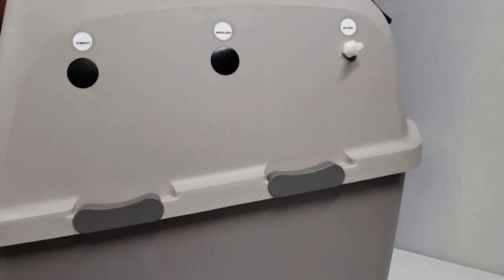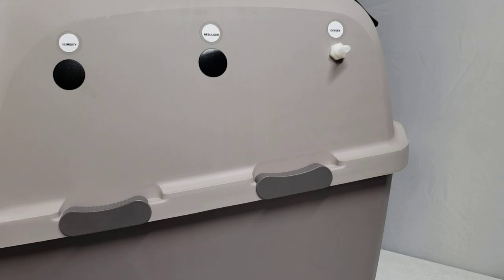Hi, this is Jake with Lifeline Pet Supplies. Today I am covering the Lifeline Pet Supplies Puppy Kitten and Pet Incubator ICU Oxygen Hookup. So if you purchase a concentrator or tank, this is how you're going to connect it to the unit.